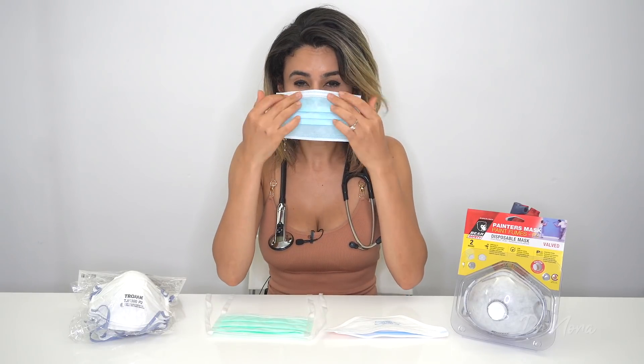I'll demonstrate to you how we place this on. The surgical mask is placed around the nose, and you press in with the metal so it's closely pressed by your cheekbones. Then you place the elastic bands over the ears like so, on both sides, and finally bring down this area to cover the chin. But as you can see, there is a lot of gap seepage of air from here and also down here as well, and hence that is why it's not suitable for protection against viruses.